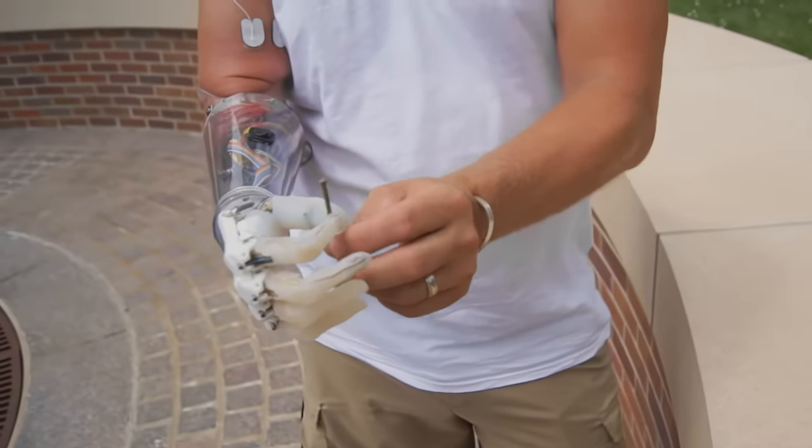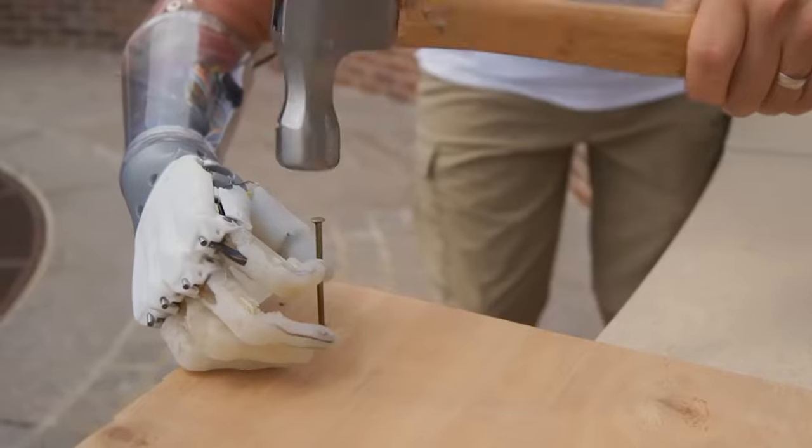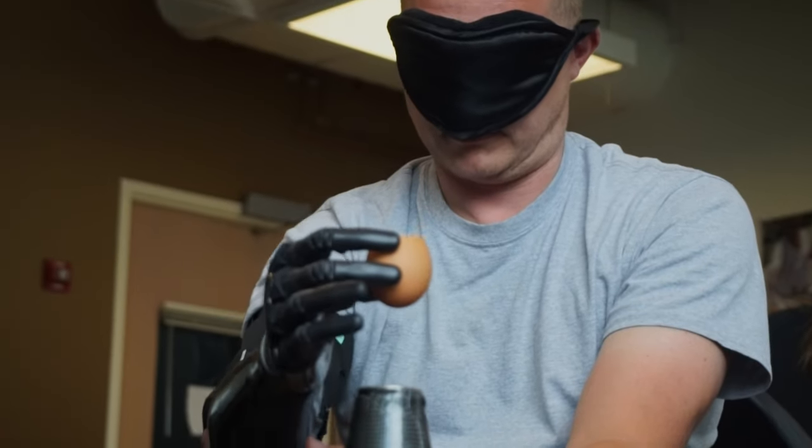I have sensory feedback that tells me how hard I'm gripping, if I even have something, and if I crush it or not.